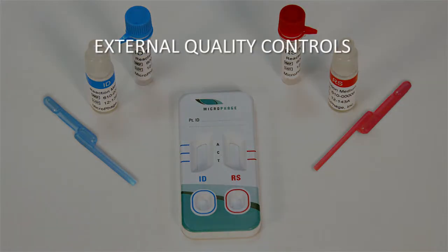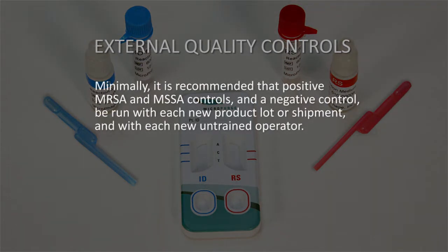External controls. Positive and negative external controls ensure that the test reagents are working properly and that the test is correctly performed. Quality control requirements should be established in accordance with local, state, and federal regulations and accreditation requirements. Minimally, it is recommended that positive MRSA and MSSA controls and a negative control be run with each new product lot or shipment and with each new untrained operator.